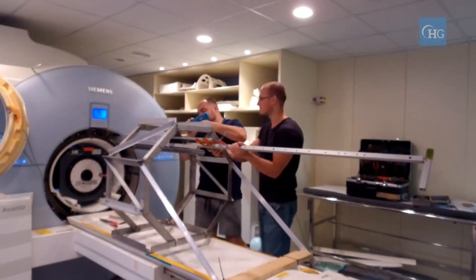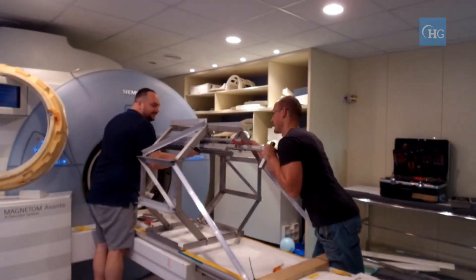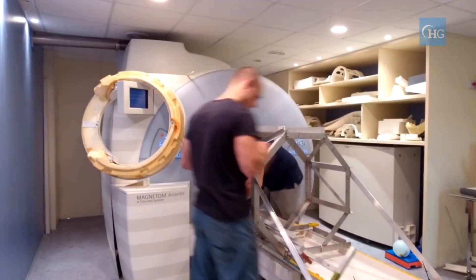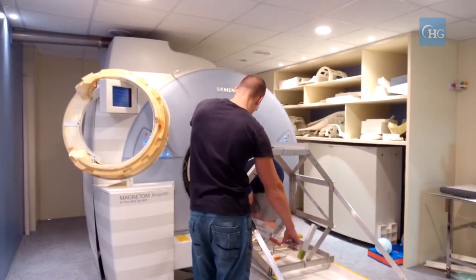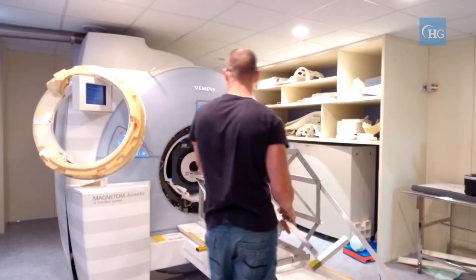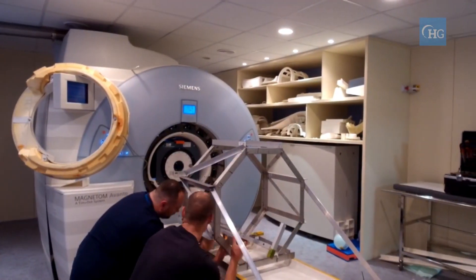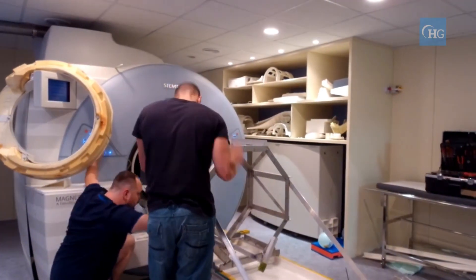These are resistive coils, usually at room temperature, capable of producing field corrections distributed as several orders of harmonics. After placing the sample in the scanner, the field is shimmed by adjusting currents in the shim coils.